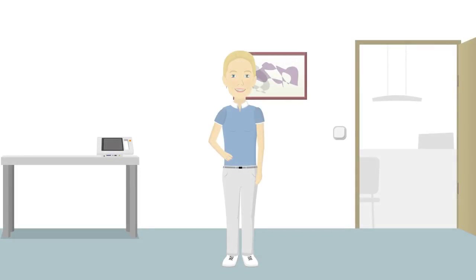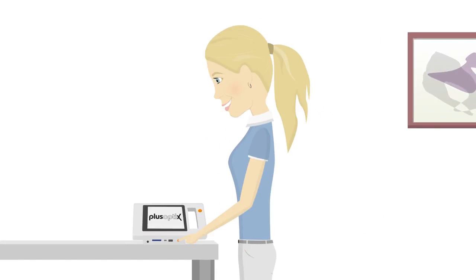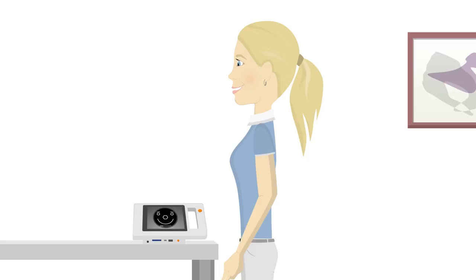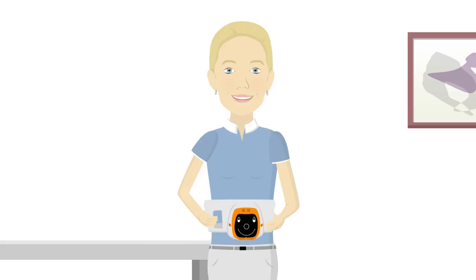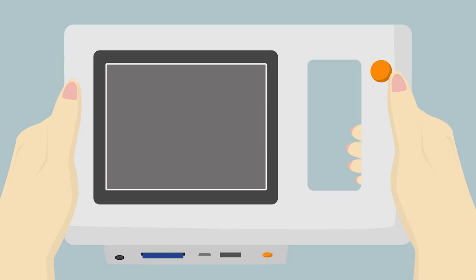Anna will now demonstrate how to select and customize the S12 settings. Press and release the Power On button. It will take about 25 seconds for the device to complete its boot sequence. The screen will change several times during this period, including a momentary blank screen.